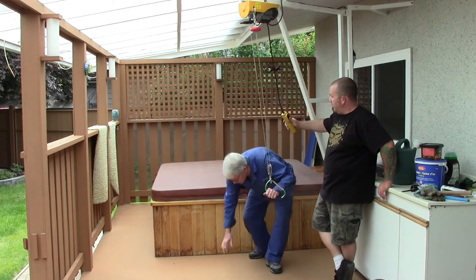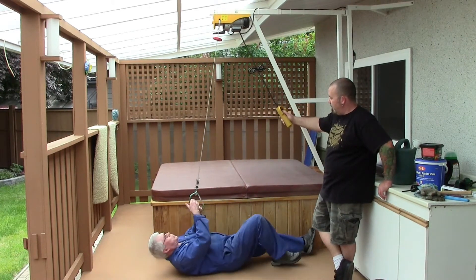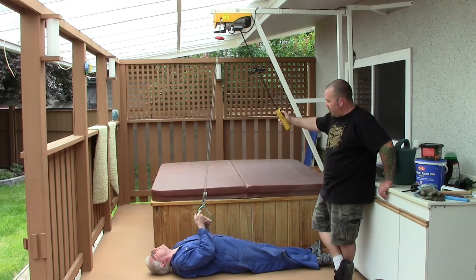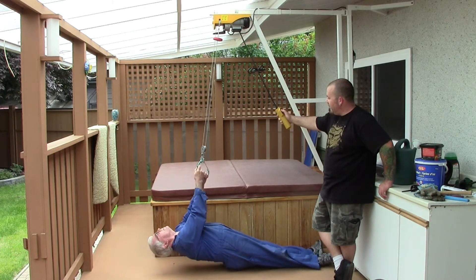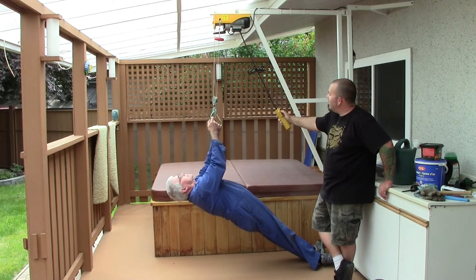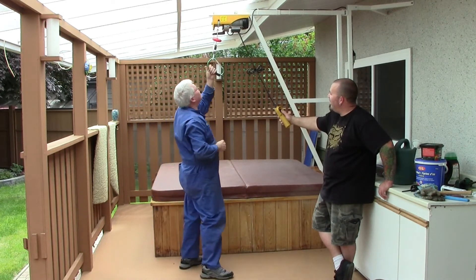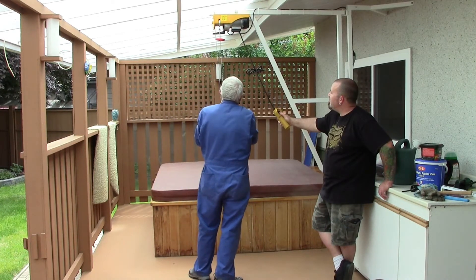In this clip we're going to have the hoist dead-lift me right off the floor. I'm almost 210 pounds, and Randy is just a fraction of my weight, so if it'll lift me it'll lift him without any problem. And it doesn't even seem to flinch. The cable ran over itself slightly and jerked a little bit, but that was because I was holding it to one side.